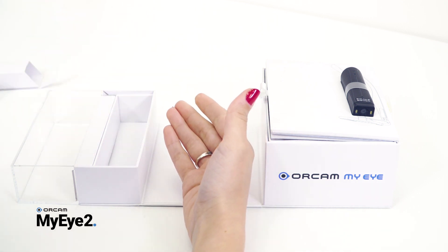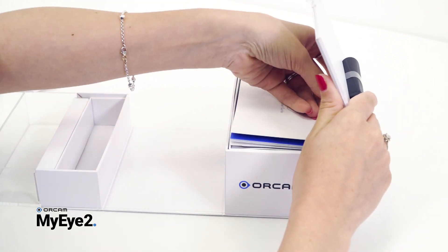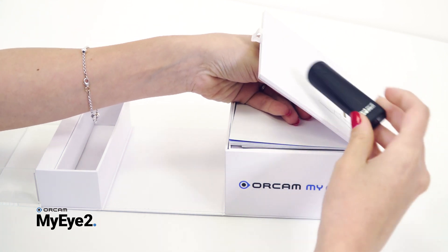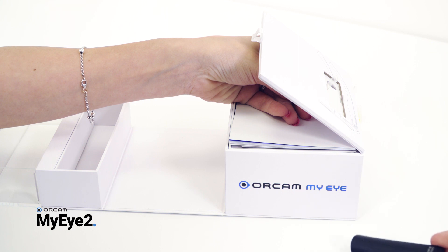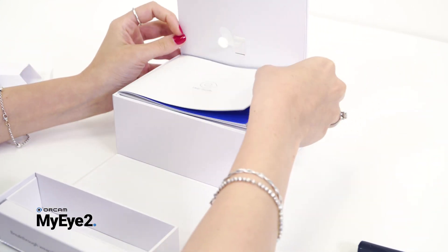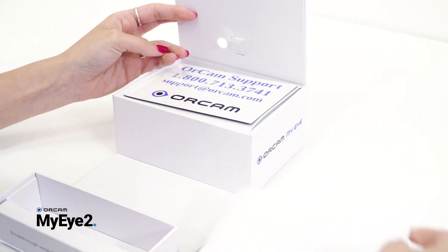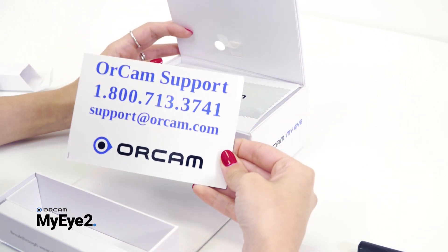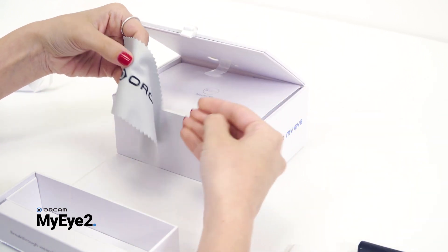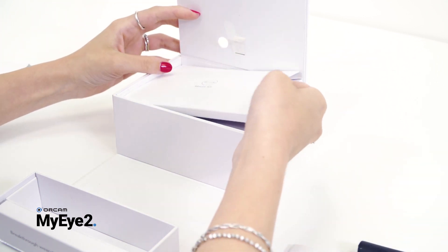The base side contains the device strapped on top. Please open the lid and pull the strap to release the device. Under the lid you will find a user guide, a fridge magnet with OrCam support contact details, a microfiber cleaning cloth, and a mount kit.